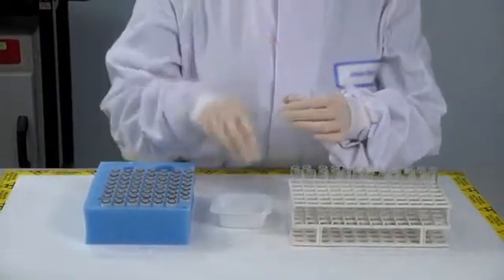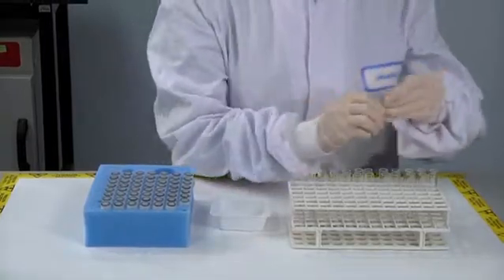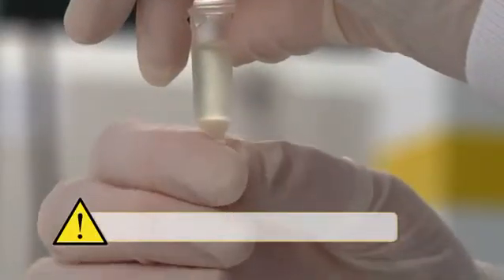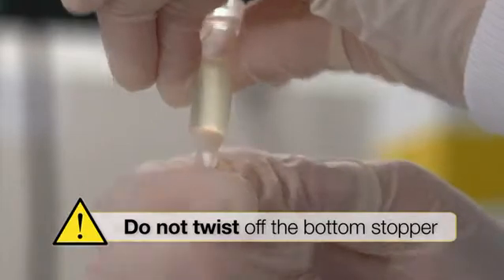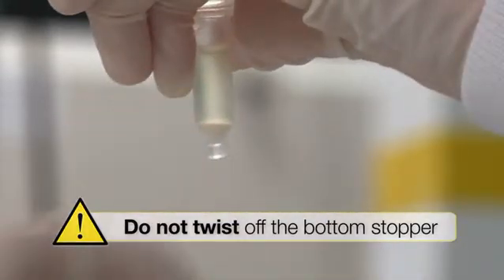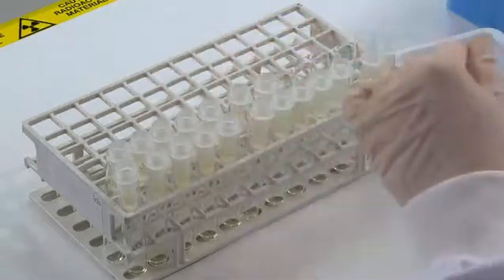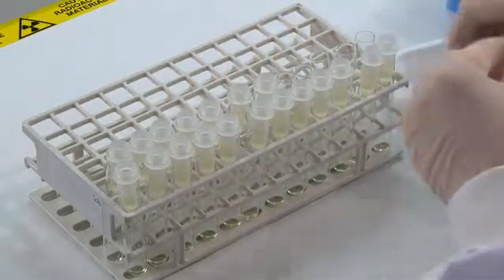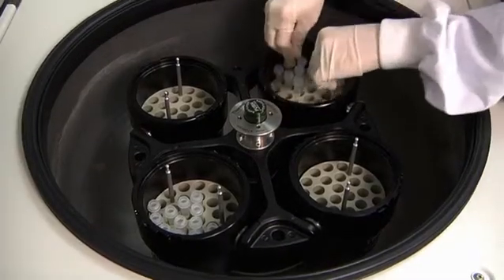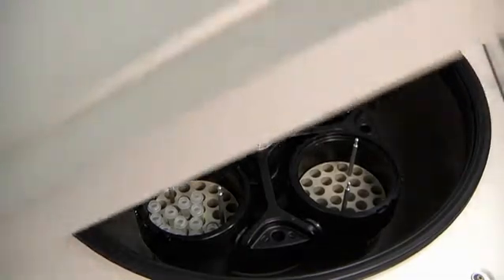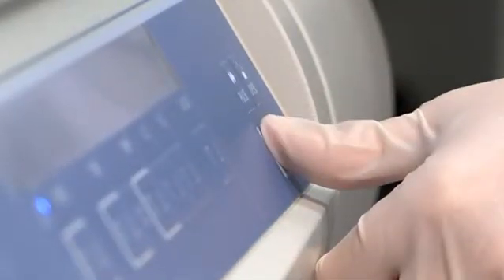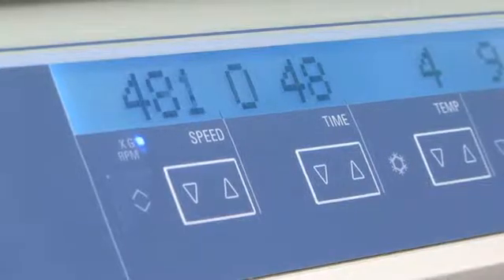Remove screw cap and break off the bottom stopper. Do not twist off the bottom stopper from immunocapsules as this may damage the immunocapsule. Place each immunocapsule in a glass or plastic tube. Centrifuge at low speed between 500 and 1000G for approximately 1 minute to remove the sample waste.